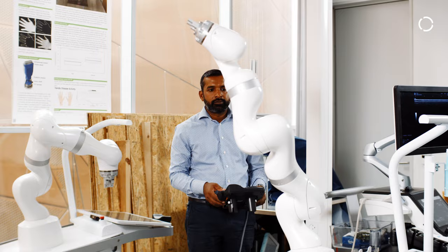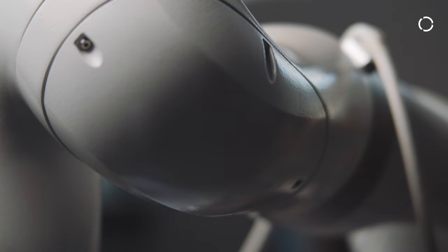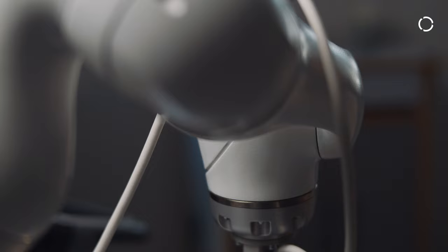What makes the KUKA LBR Med special and unique in this field is that it has all the right certificates. So you don't need to deal with getting the robot certified; you can concentrate on getting your product certified.